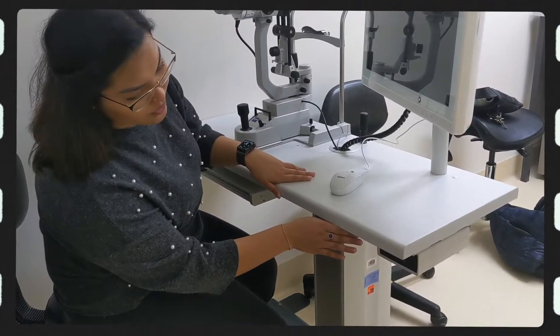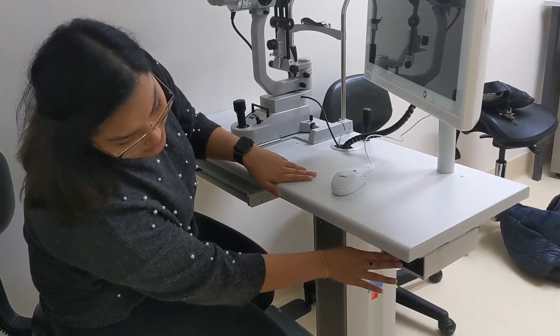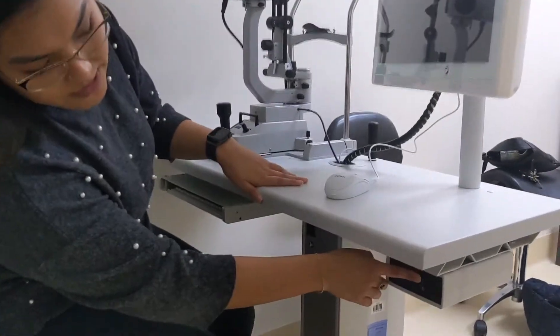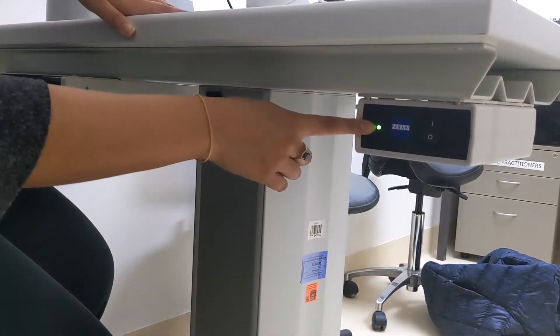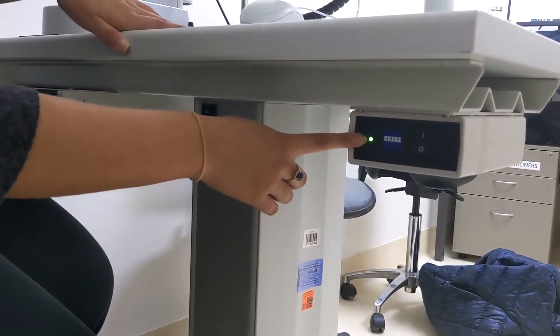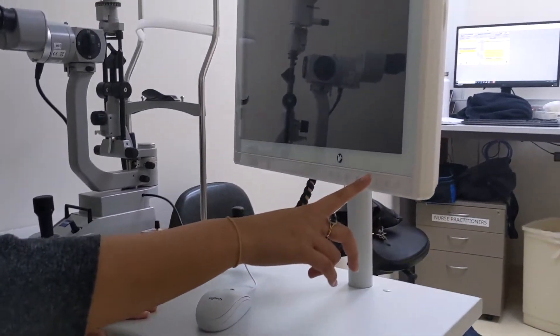To turn on the machine, there's a button here — a little box which you just switch up. A little green light comes on, and once that green light is on, you can turn your monitor on.